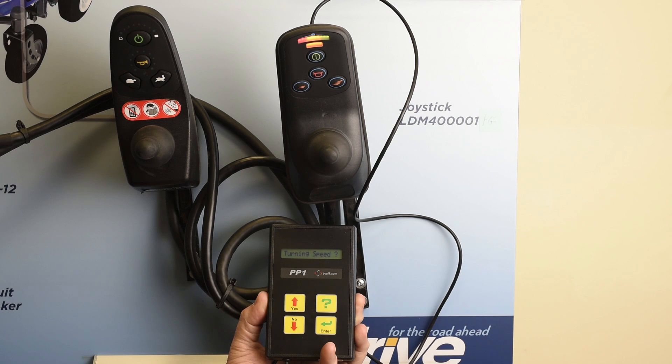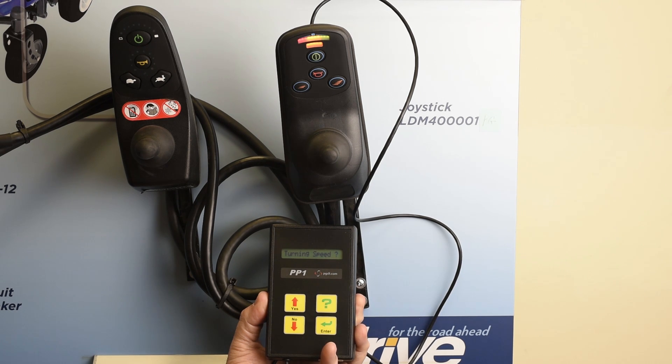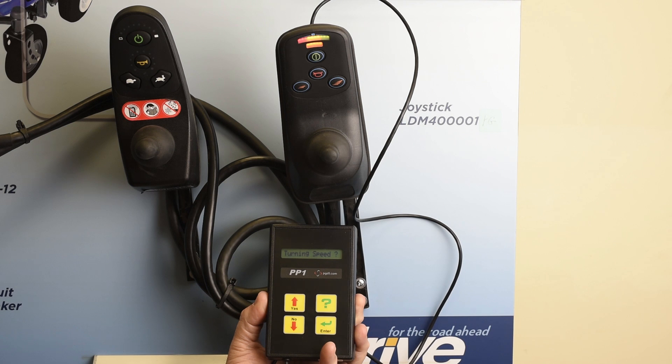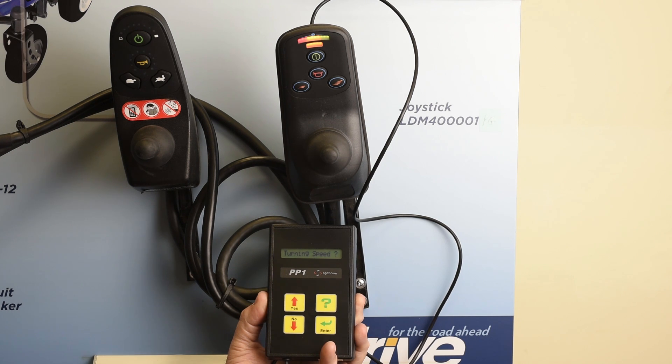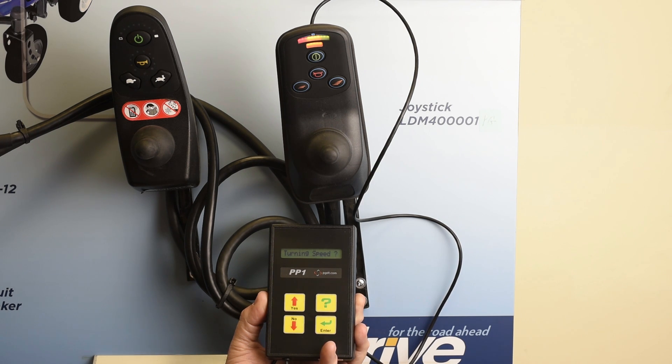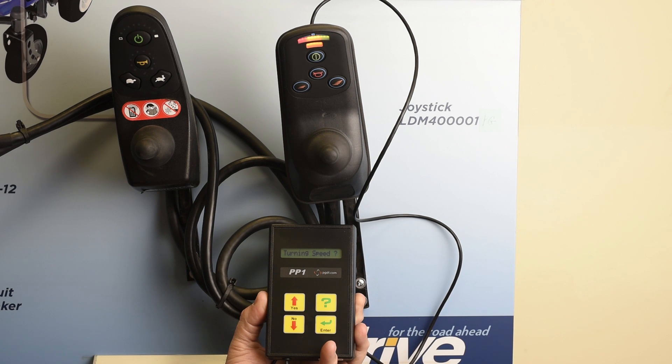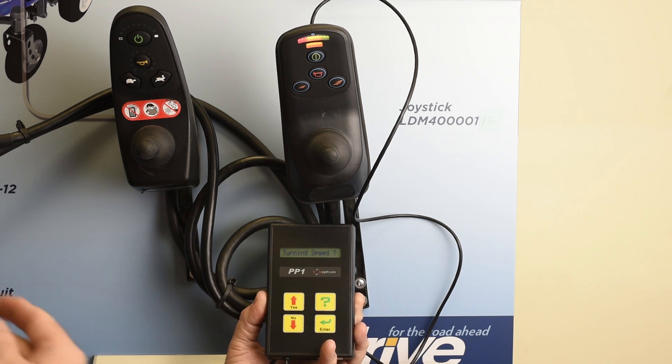In the first example, we want to limit the top speed of the chair because the client is in a nursing home and drives too fast in crowded areas and could injure someone if the chair runs into them. For this tutorial, we're going to use this display board that we've made up as a teaching aid — basically a power chair with the electronics and motors without the frame. In this case, it's a Cobalt.